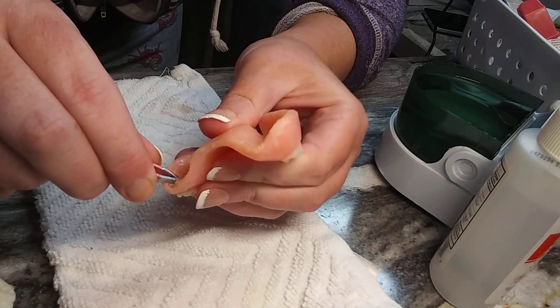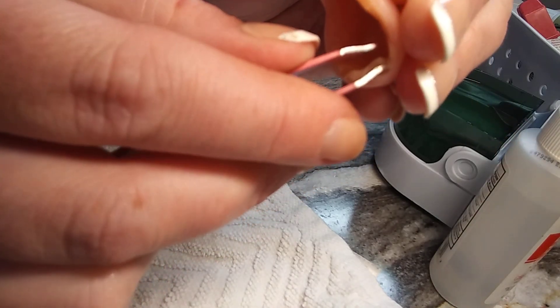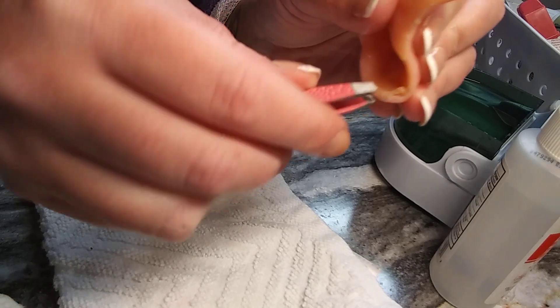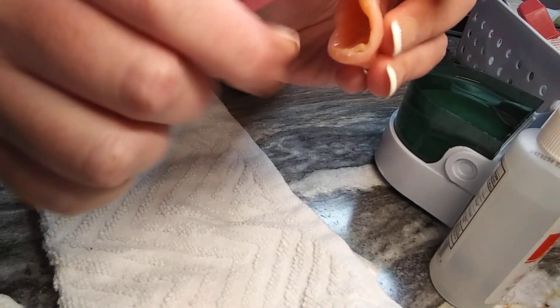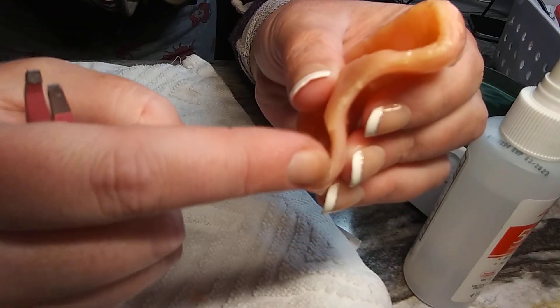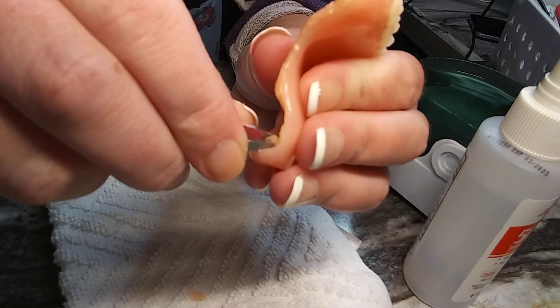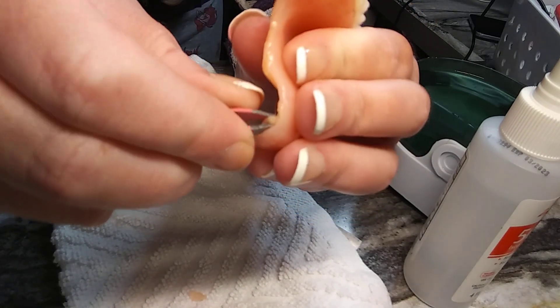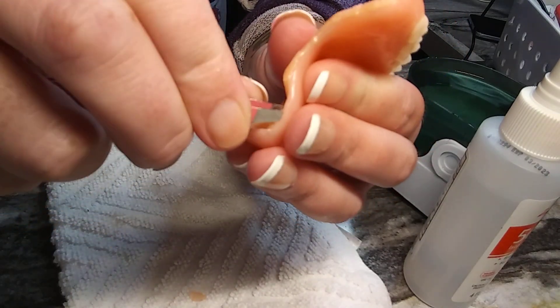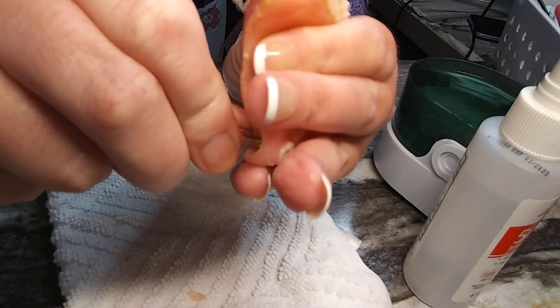By the way, it hurts to do this when you pull because sometimes I pull too hard, which I shouldn't. All you have to do is take your tweezer, stick it in between — I want to get the light in here better. See how you can see the reline coming up? You put one end of the tweezer underneath the reline, the other one you're pinching, and all you do is slowly work — go further in, pinch up, further in, pinch up — and you work it out.